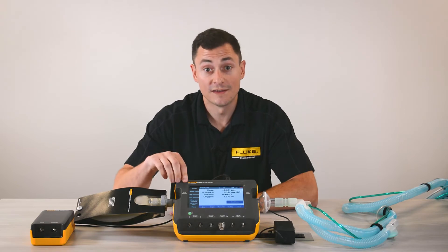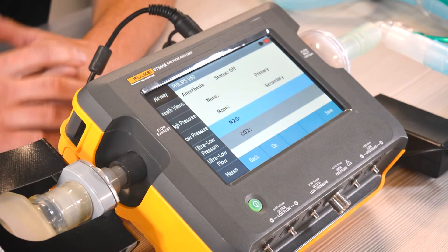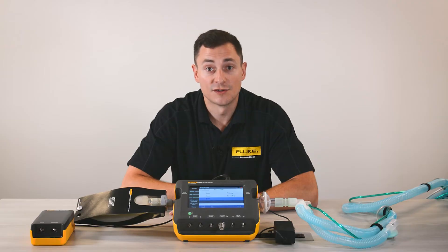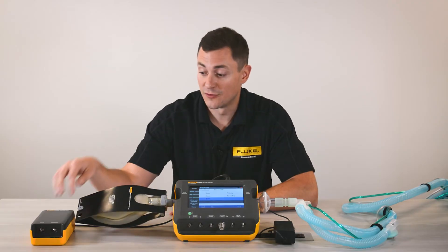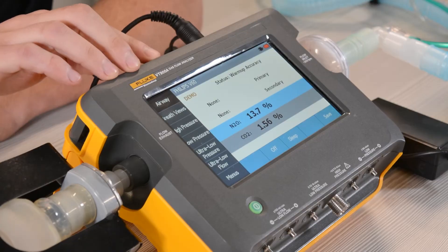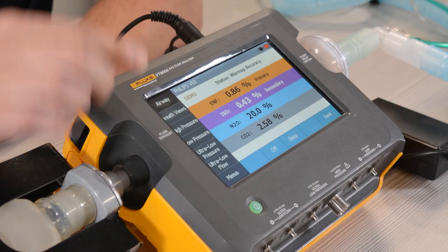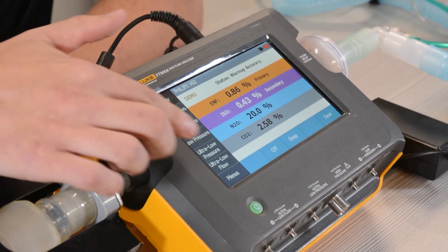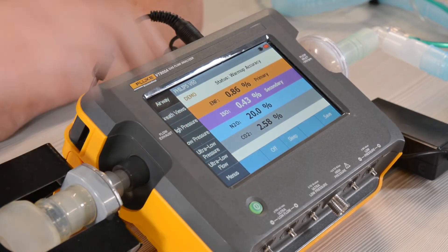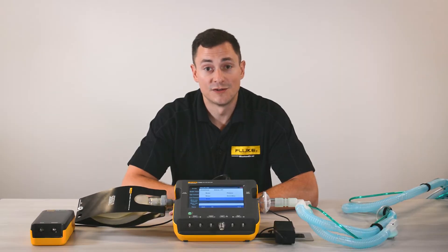Moving back to the airway screen in anesthesia, I do want to talk about the vapor anesthesia tester. By adding this unit, you're able to measure all five anesthetic agents across their full range, as well as CO2 and N2O.